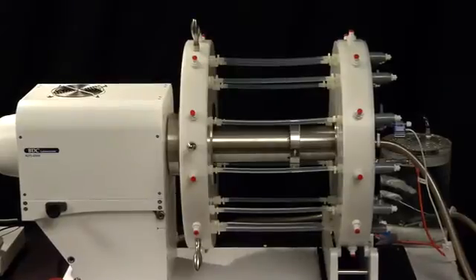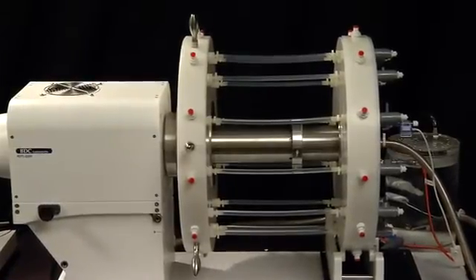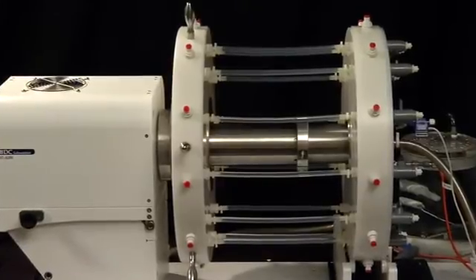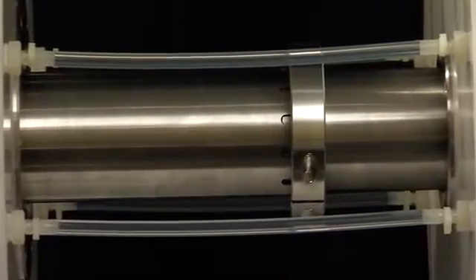The RDTL-0200 is unique in that it features a dual drive emulator that drives a pressure wave at either end of the mock vessels concurrently, pressurizing both ends with every cycle and preventing the occurrence of standing waves.